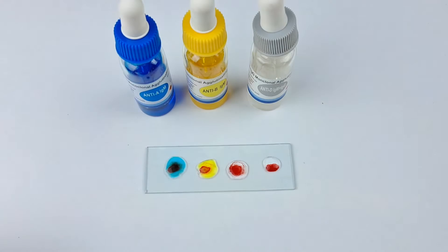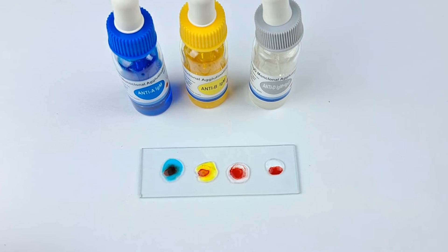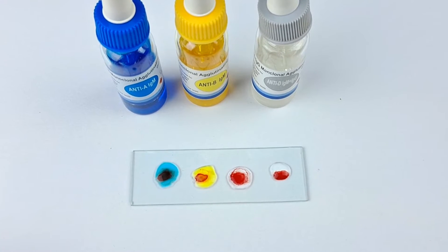During reagent addition, always take extra care not to touch the tips of the reagent droppers with any of the blood samples.